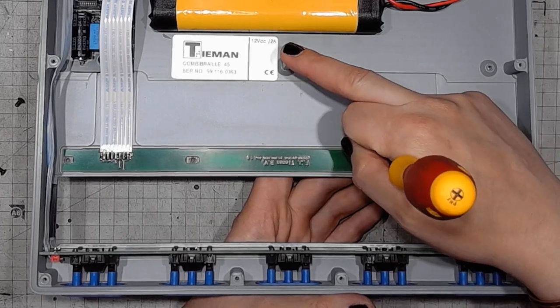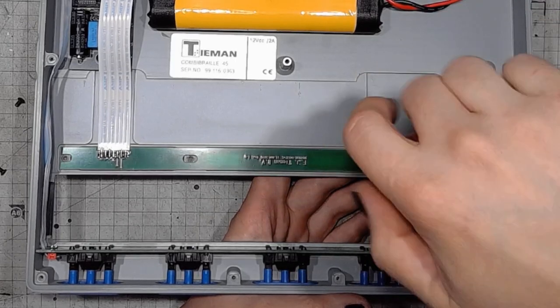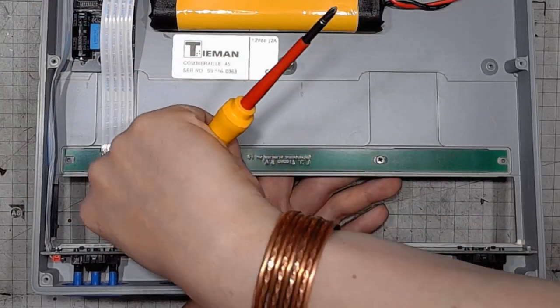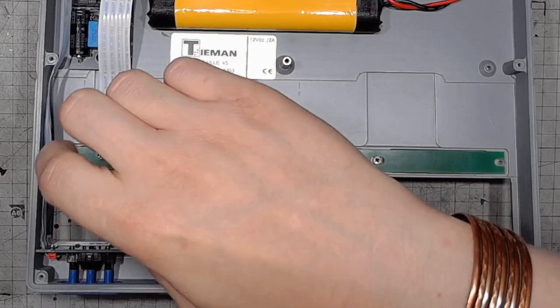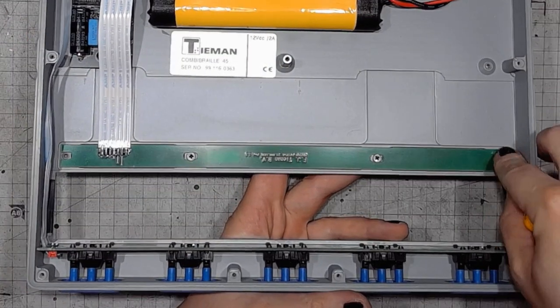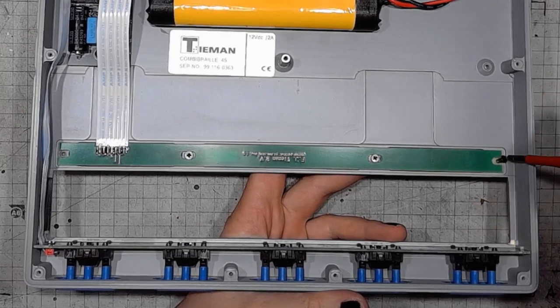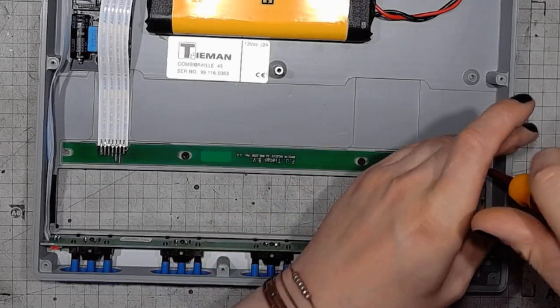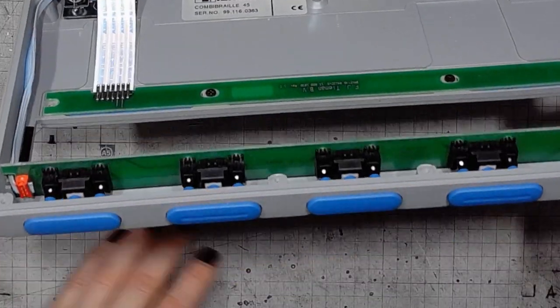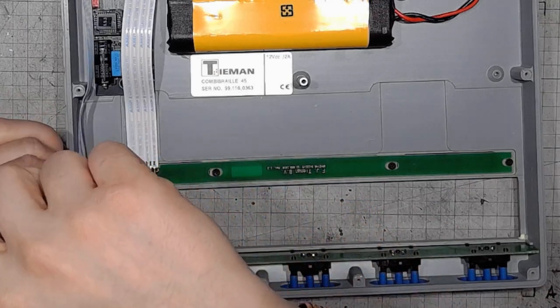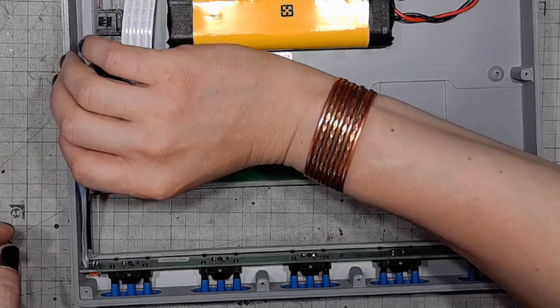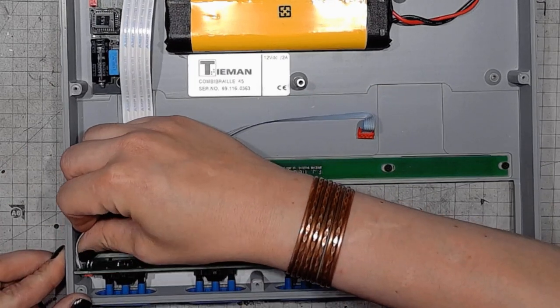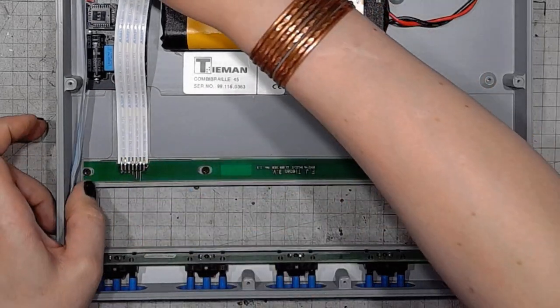There's one threaded standoff in the center of the device, and one another right here. Also worth noting because I found two M3 screws when taking the bottom part of the device. Here's the last one. I think I might form this ribbon really flat.